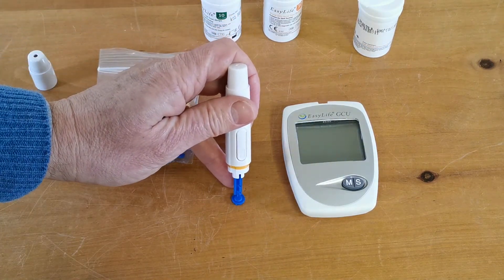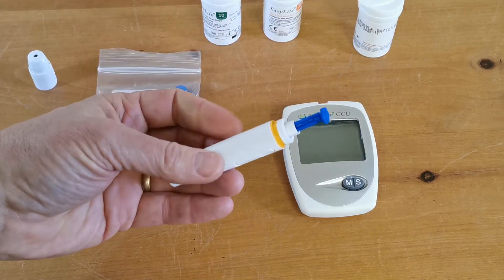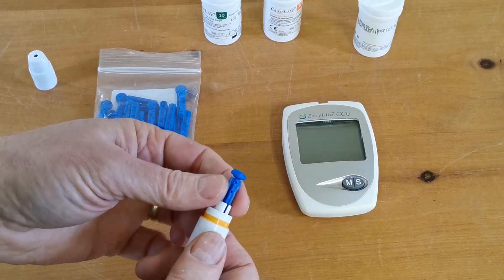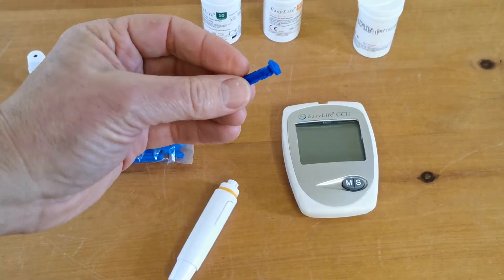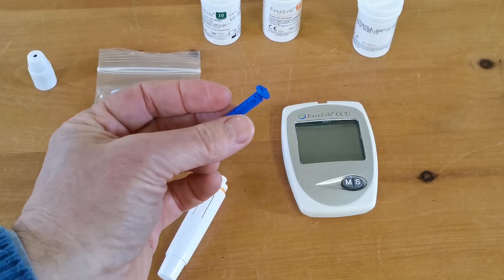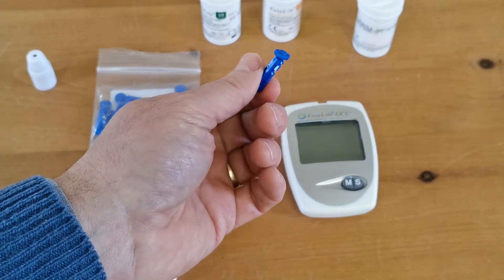The procedure for making this lancet safe is, on a nice firm surface, to push the tip of the lancet into that cap and then remove it safely. Basically then you've covered the sharp end of the lancet and you shouldn't be able to stab anybody and contaminate them with whatever blood remains on that lancet. That should be disposed of safely.